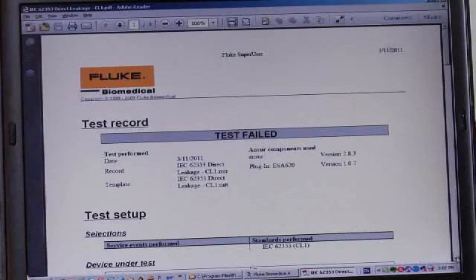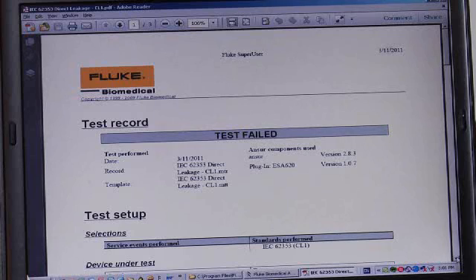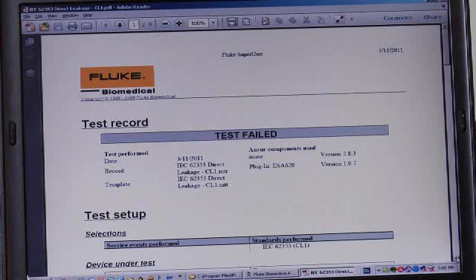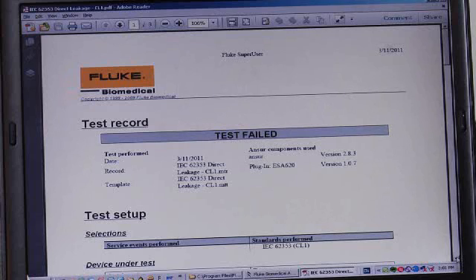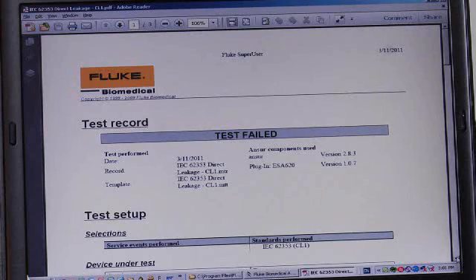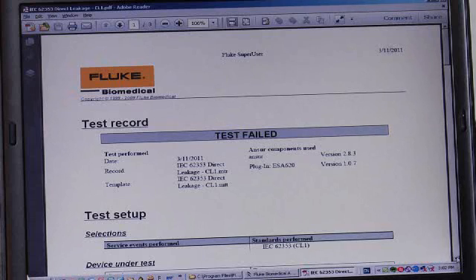We've created a PDF version of the test report layout for the detailed type of test report. And you can see that we've been able to customize our report header to include our logo. The overall test status is reported in the first gray bar, and we see that it's test failed. And the reason that it failed was because we had a problem with the grounding resistance of the medical device that was being tested.